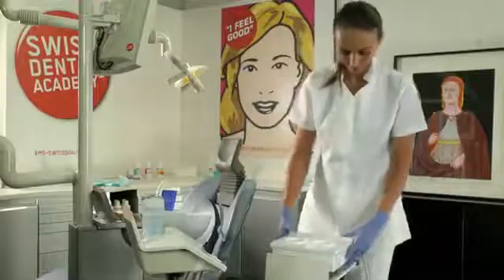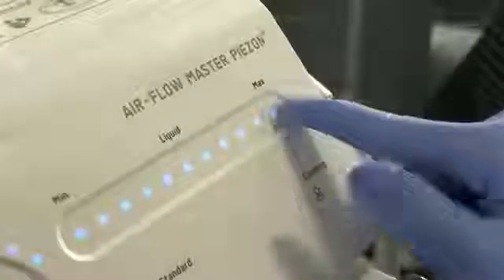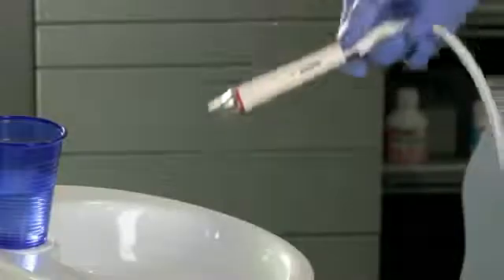To confirm that the new pump is working correctly, apply a bottle filled with distilled water. Turn on your unit and set the irrigation flow to maximum. Connect the Piezón handpiece and hold the right pedal down until water flows from the handpiece.